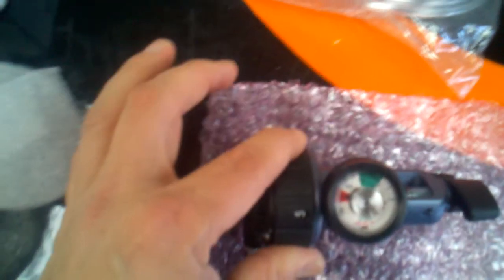The Banzai I particularly think is easier to work and it has settings up to 7, which is really nice. Now we'll show you how easy it is to click. You can hear it snap — I'm doing it with two fingers while I'm filming. Settings go up to 6, 7, and then continuous flow, and then you can change it to off.